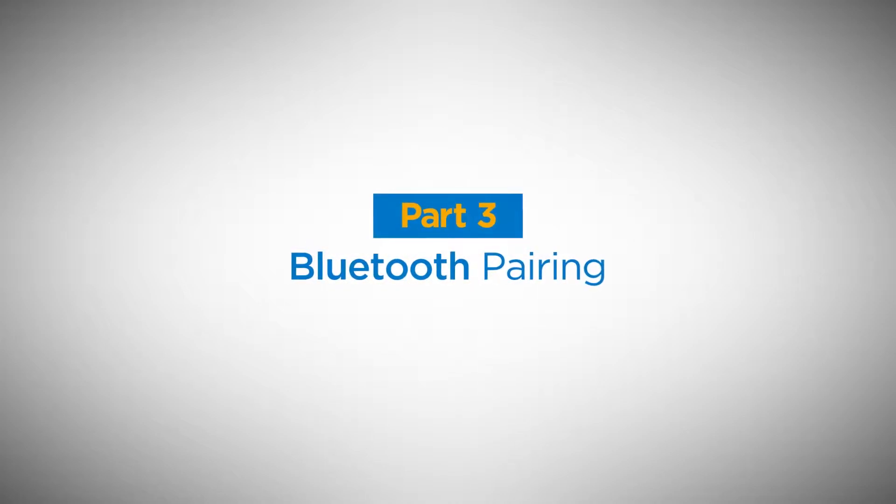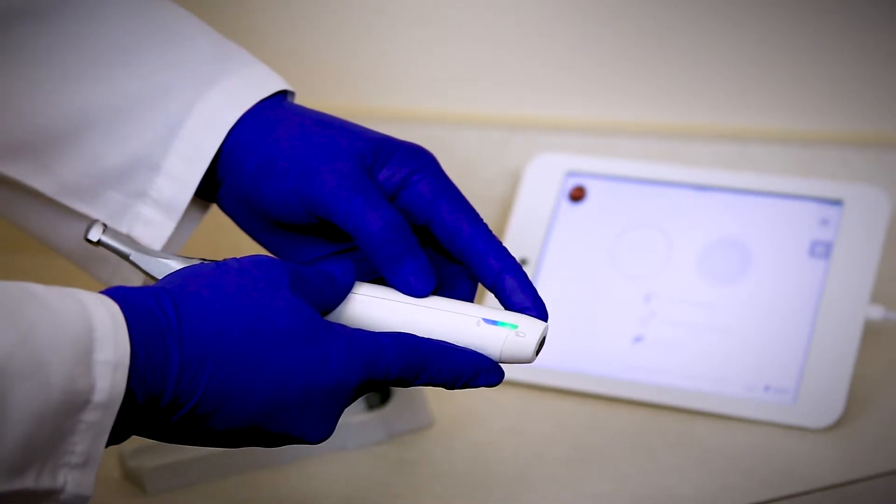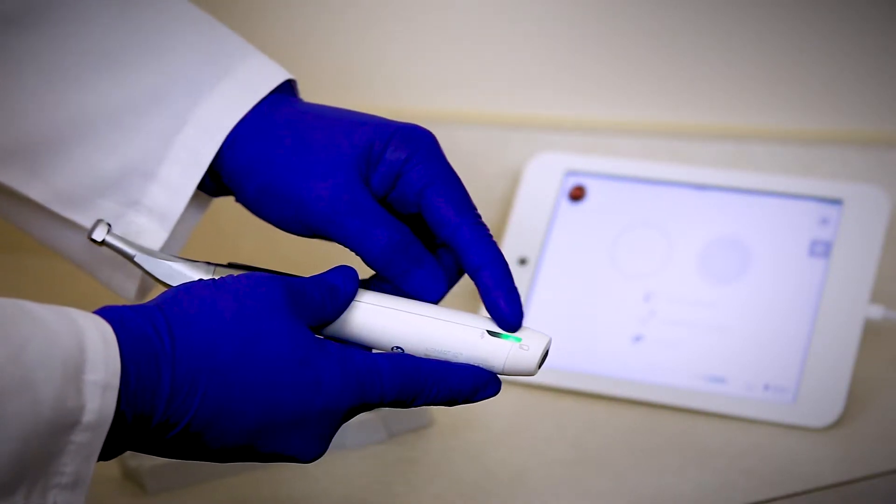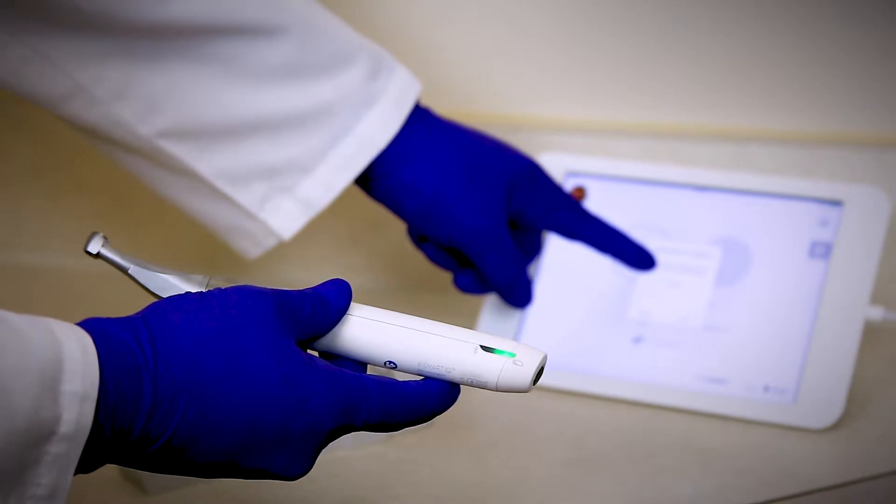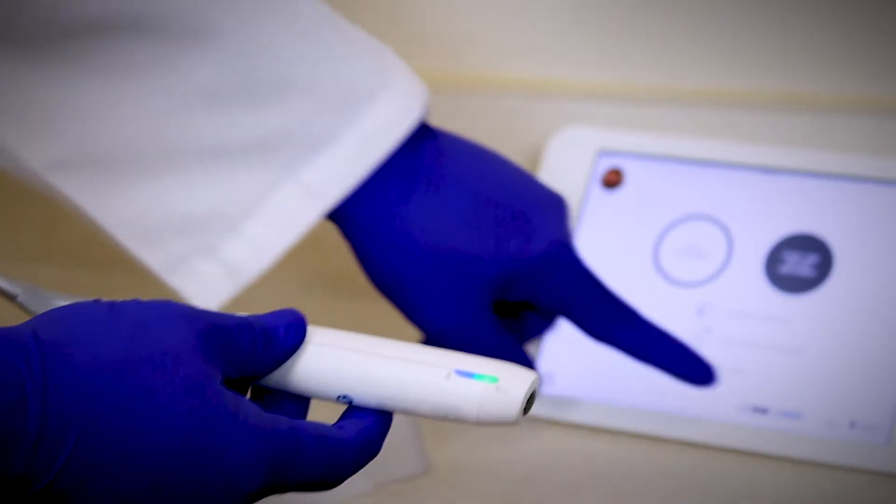Bluetooth pairing. On the motor handpiece you'll see a Bluetooth icon at one end when it's ready to connect. It will be flashing blue and solid blue once it's connected.